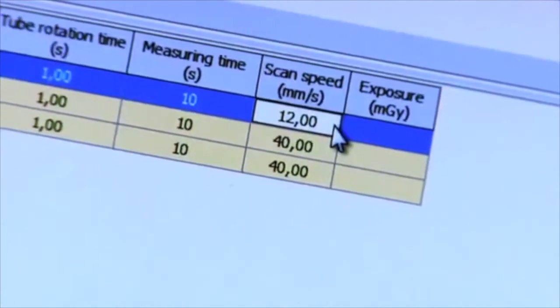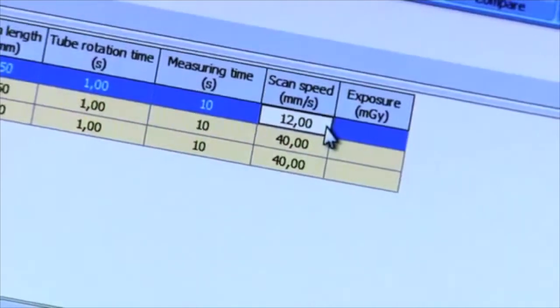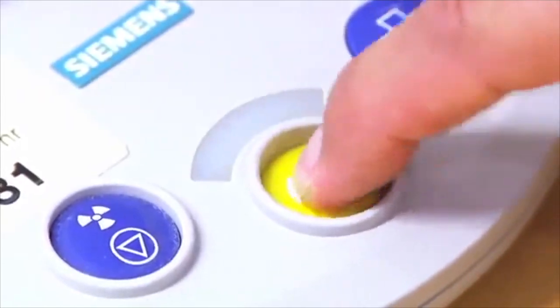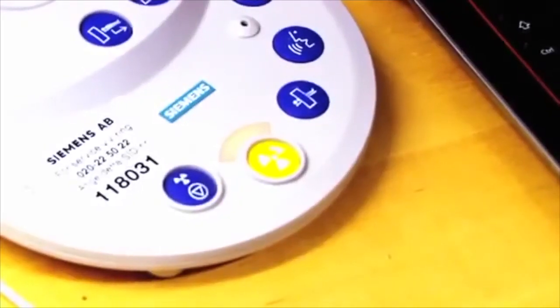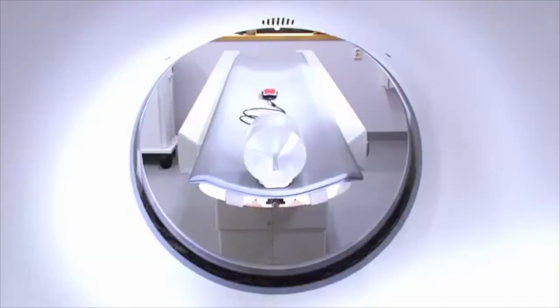Once all parameters have been added, Ocean will automatically calculate the scan speed. Perform the new scan. Start the CT and start the measurement process in Ocean.